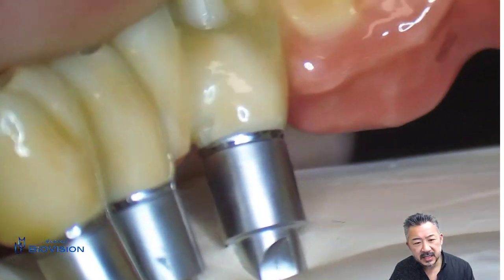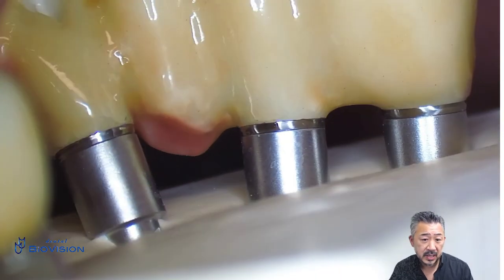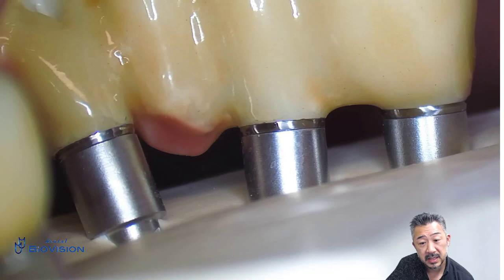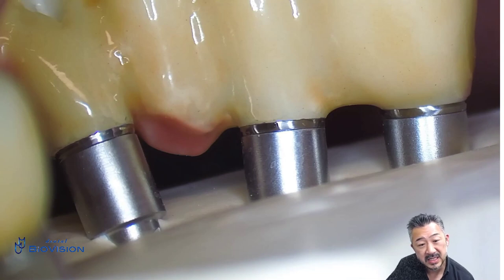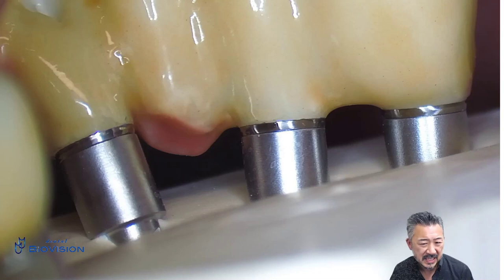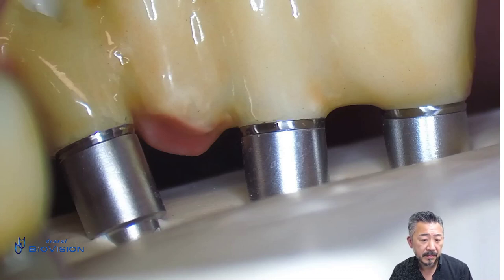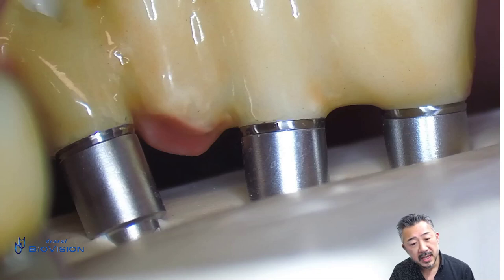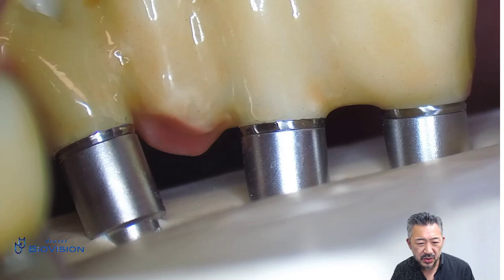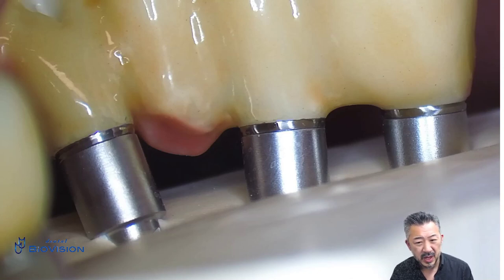What I can say is: if the intraoral scan data and the intraoral index provisional data are overlaid in the dental system, it is possible to make a superstructure that is extremely accurate even without a working model. So that's why when someone says intraoral scans do not allow full-arch processes — what do you think of this?